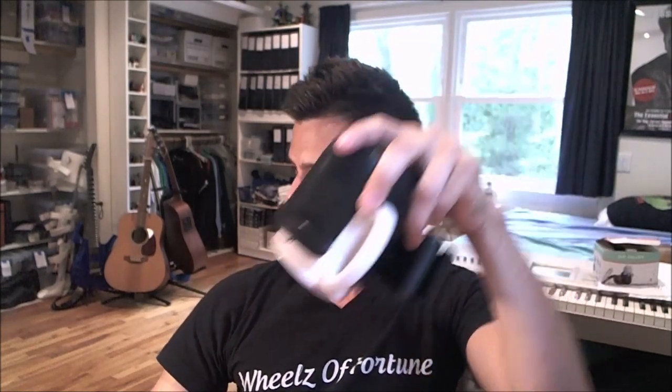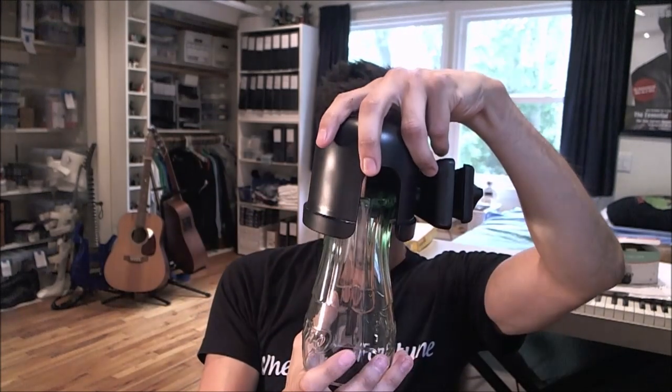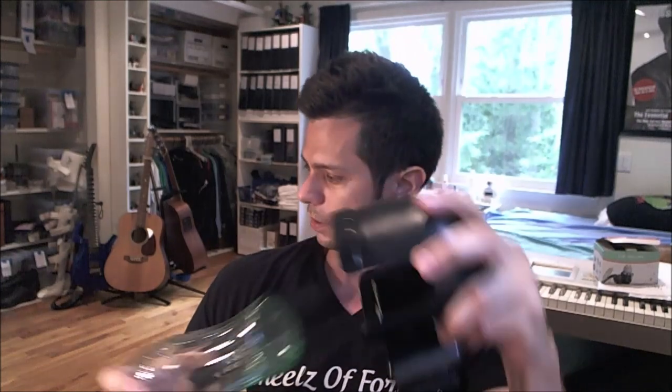I mean, you could do this with that too. I wouldn't — you have to use your own judgment. Obviously you're not going to be putting it upside down anyway because you're going to have liquid in there. But like, for example, this glass — because the bottom is smaller, that's the fault of the glass, not of the product.